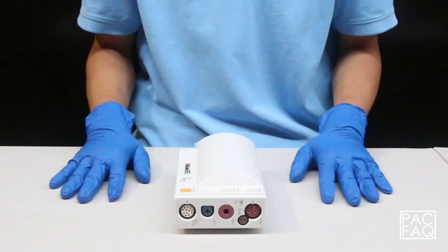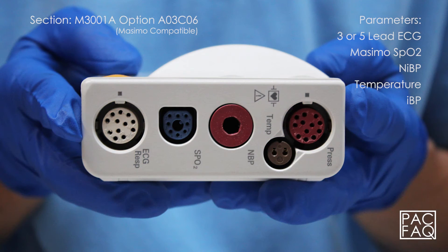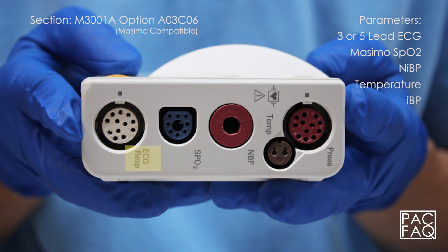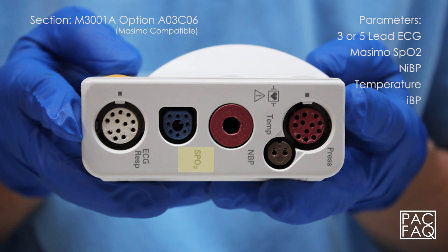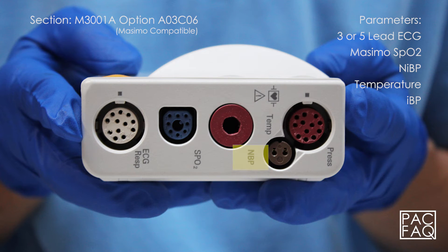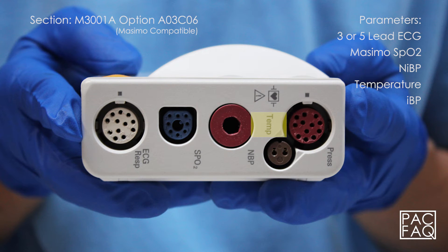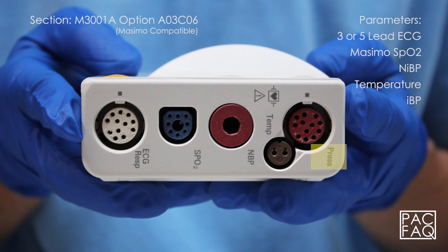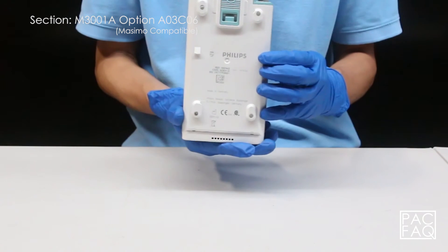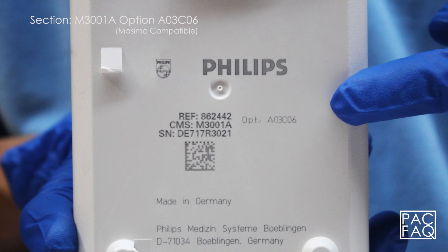Here we have option A03 C06. This unit comes with parameters 3 or 5 lead ECG, Masimo SPO2, non-invasive blood pressure, temperature, and invasive blood pressure. The product identification and serial numbers are located on the bottom of the unit.